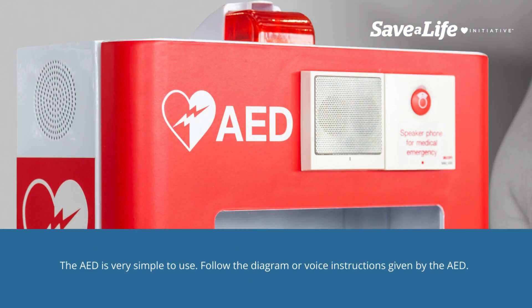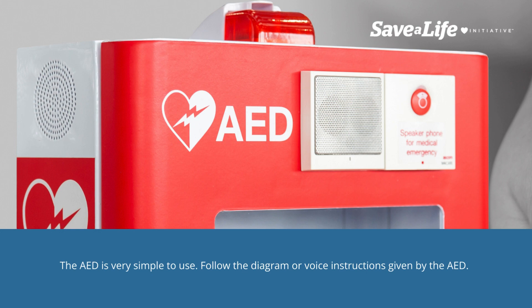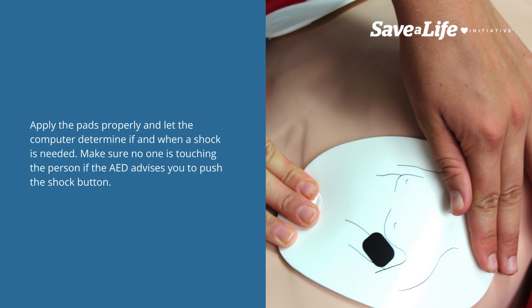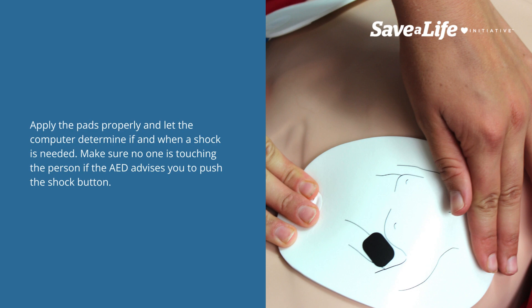The AED is very simple to use. Follow the diagram or voice instructions given by the AED. Apply the pads properly and let the computer determine if and when a shock is needed. Make sure no one is touching the person if the AED advises you to push the shock button.